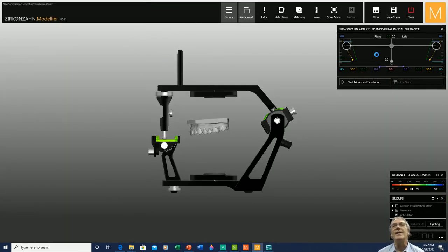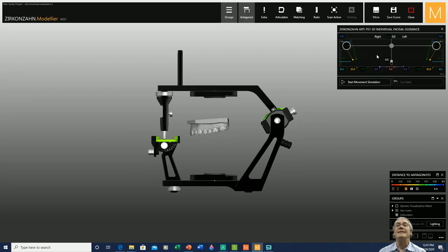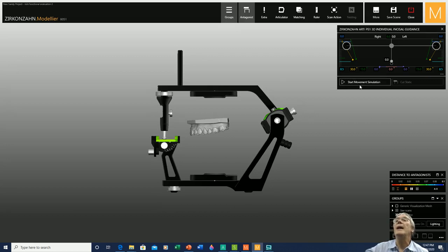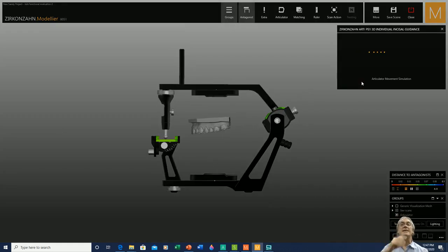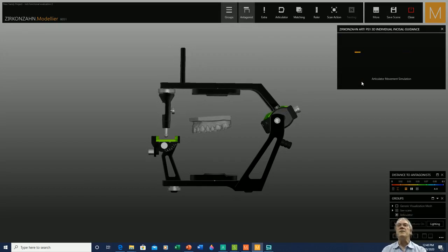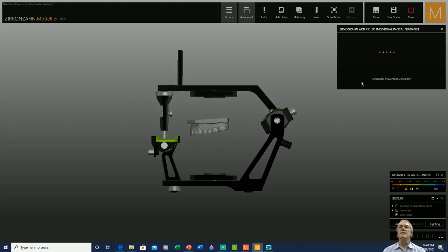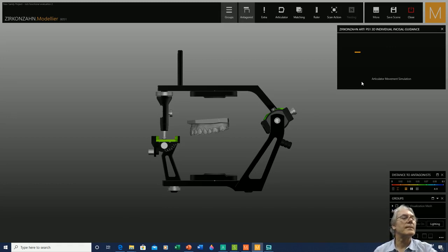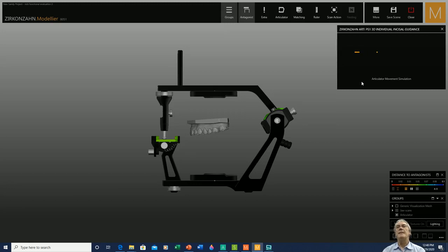I repeat the movement. Whoever is used to doing these procedures in the analog world with all the papers really knows how difficult and complicated it is. Now, utilizing a digital articulator, you can see how easy and visible everything is in relation to what we need to perform. I reactivate the movement simulation so it reads the surfaces of the teeth and tells me if that contact is still there or not. It always just takes a couple of seconds to calculate.